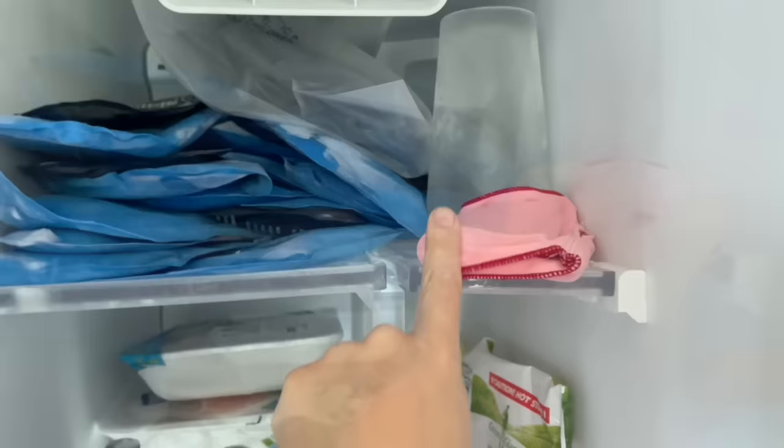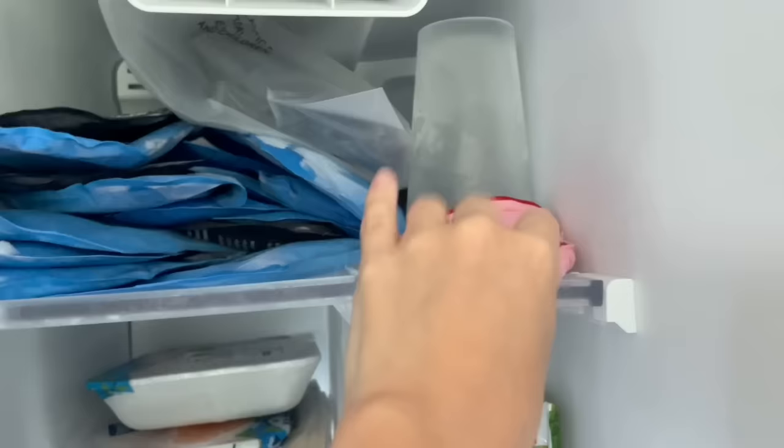I did also try a glove, but the mittens are far more recommended. I used the glove because I wanted to be able to use my phone and keep my fingers out. But speaking of the glove versus the mitten — Suzy Pad has the full mitten that covers your whole hand, whereas the little glove I used on my right hand for the majority of my first infusion, thinking that the cold on my hand would stop the neuropathy from getting to my fingers. But that was not the case — I now have lingering numbness and tingling in my thumb and pointer finger of my right hand, and it has been like that basically since my first infusion almost two months ago, whereas I don't have any lingering neuropathy in my other hand.